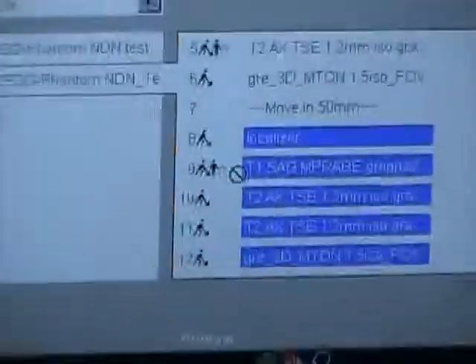Drag that all into the queue here and now when you open and apply, press continue, make sure the table doesn't move out, and you're set.